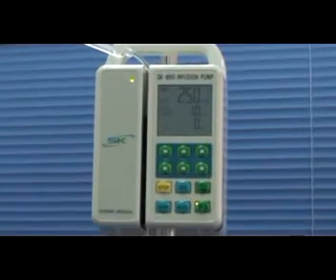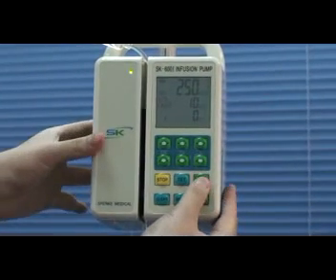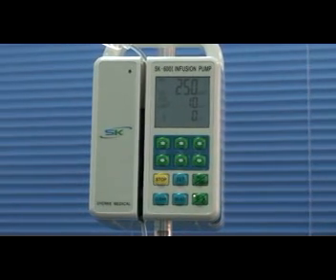Next step is to press the start key and start infusion.